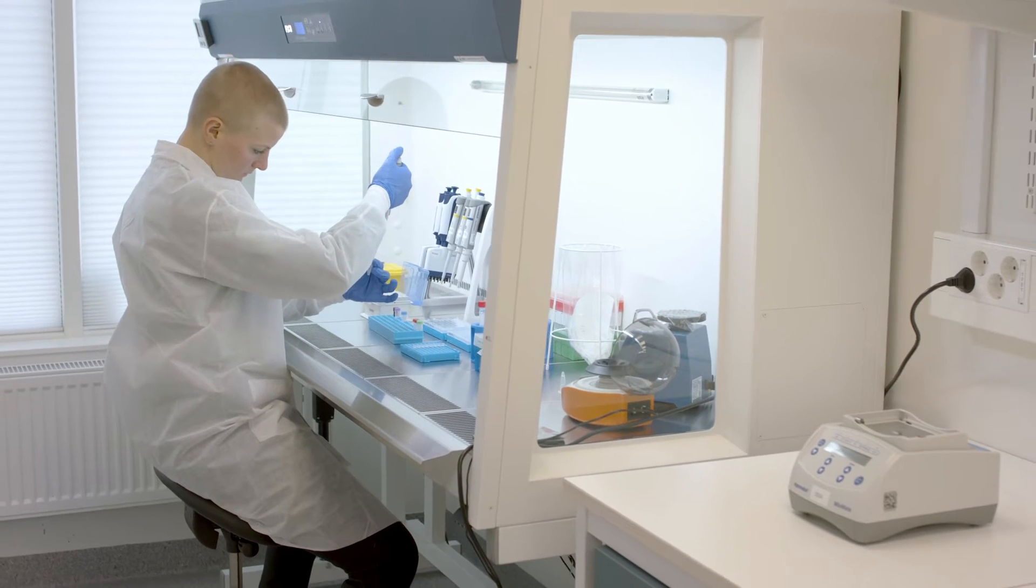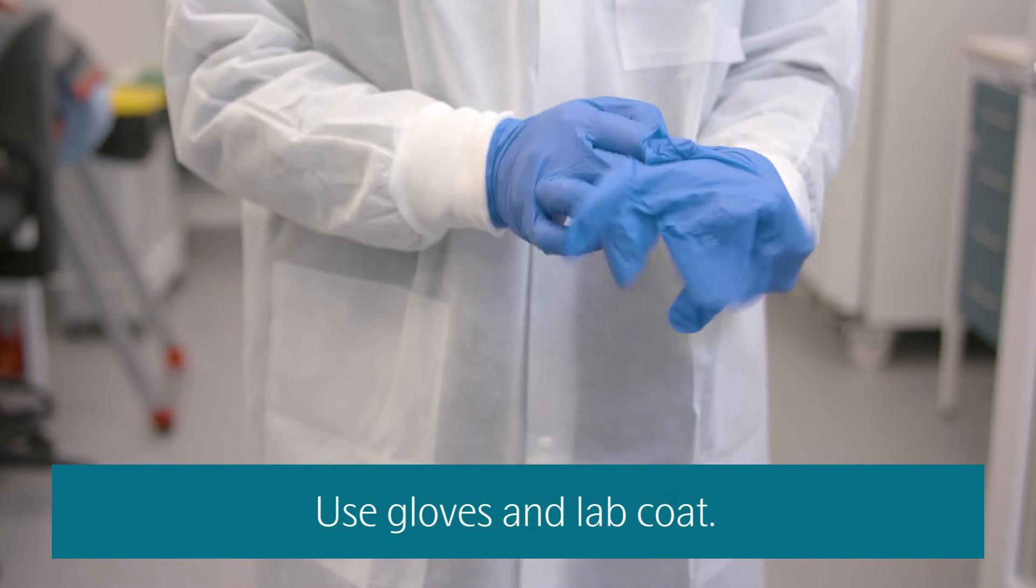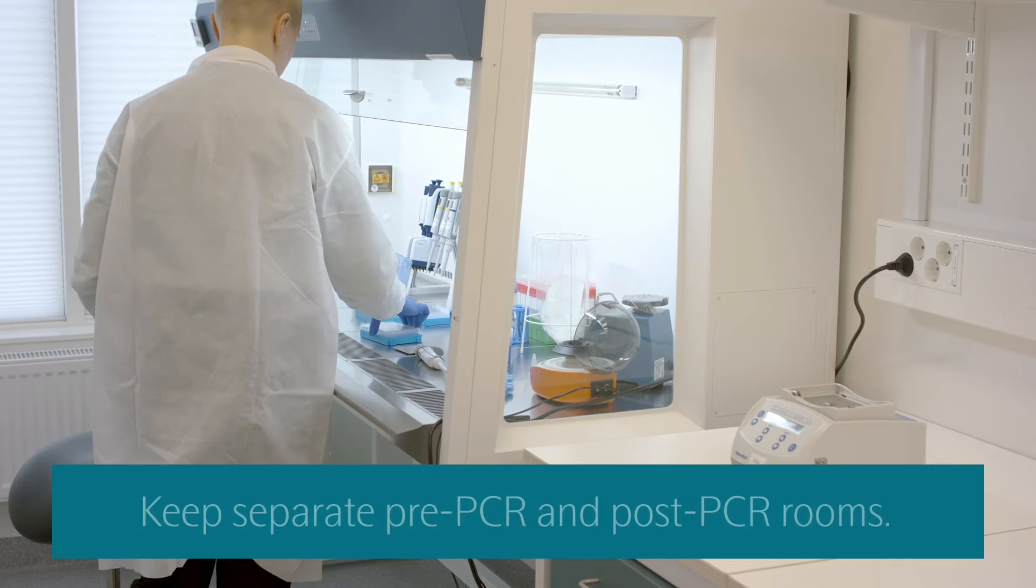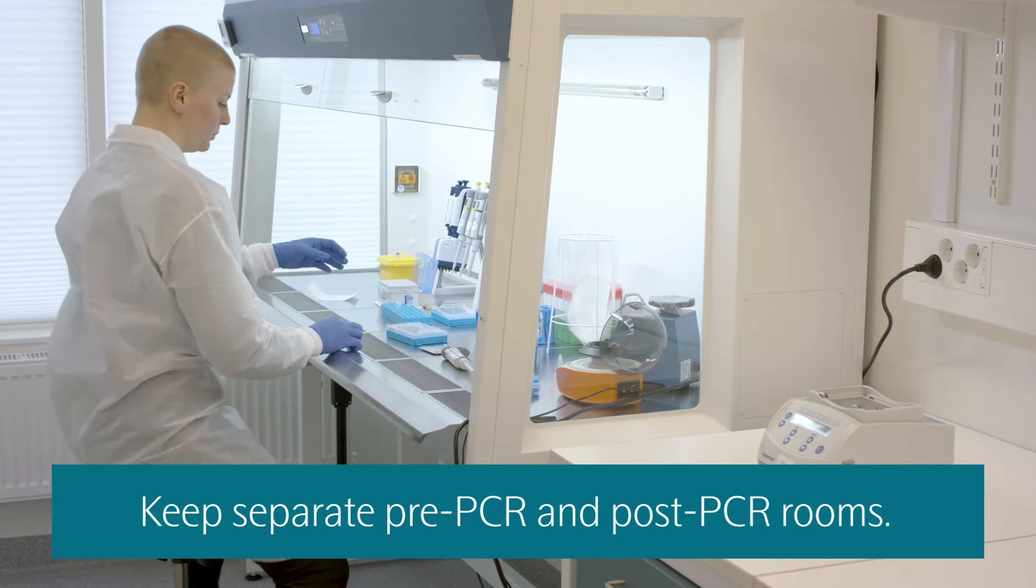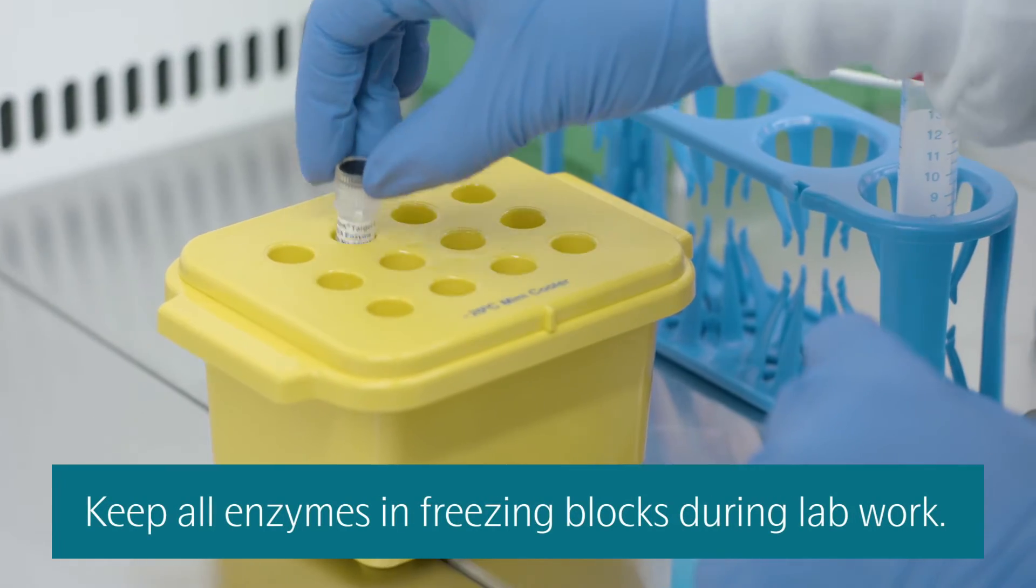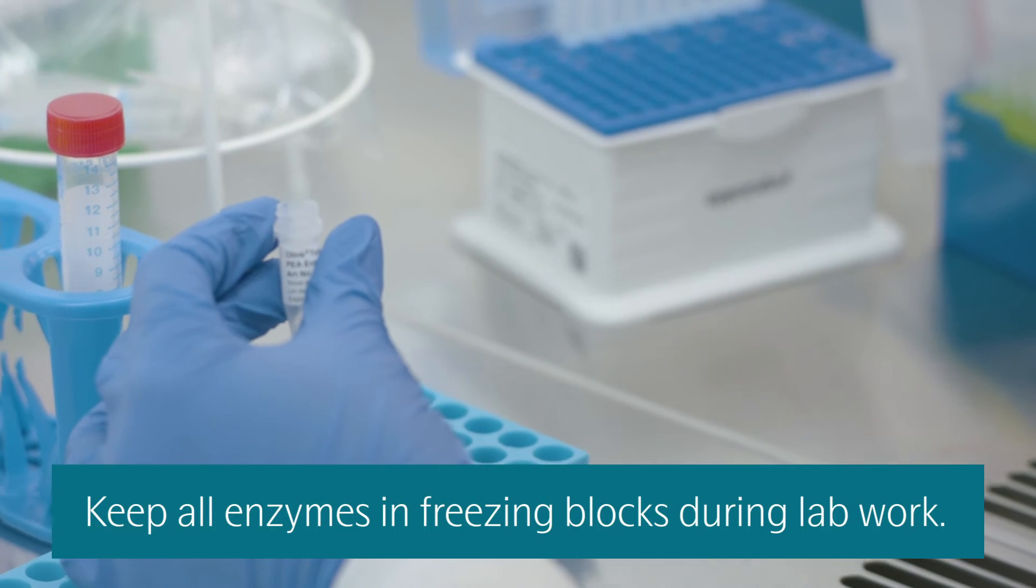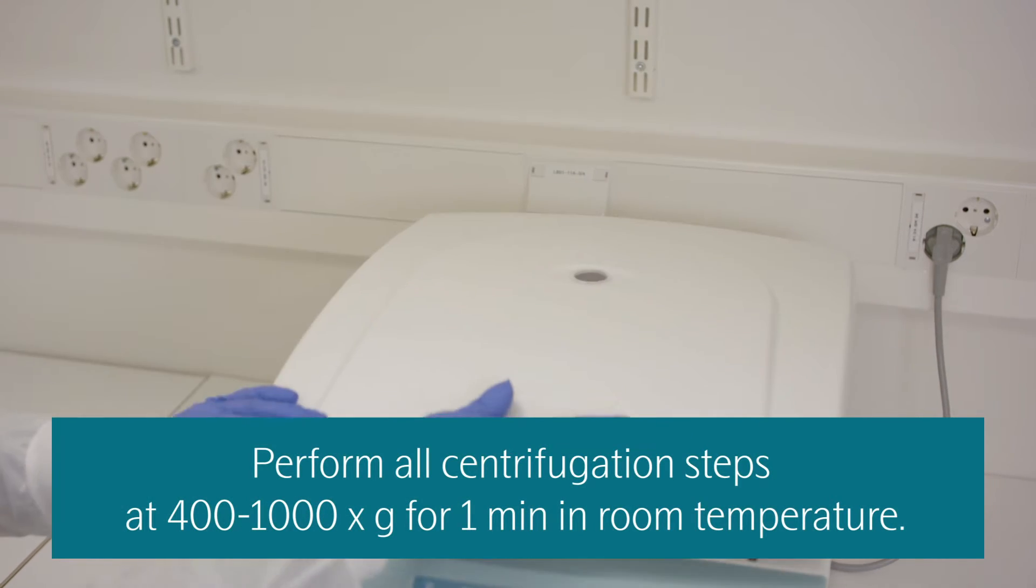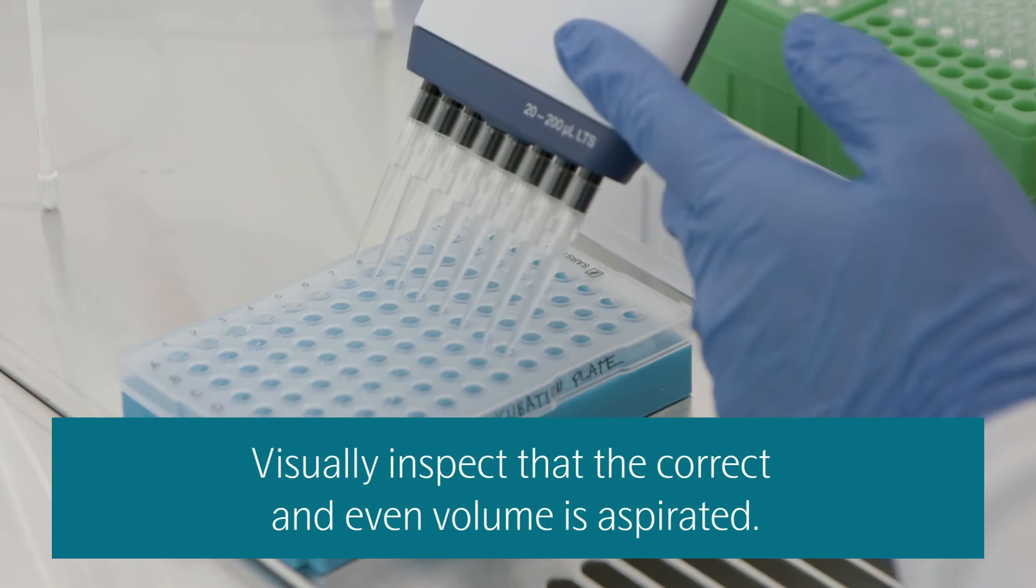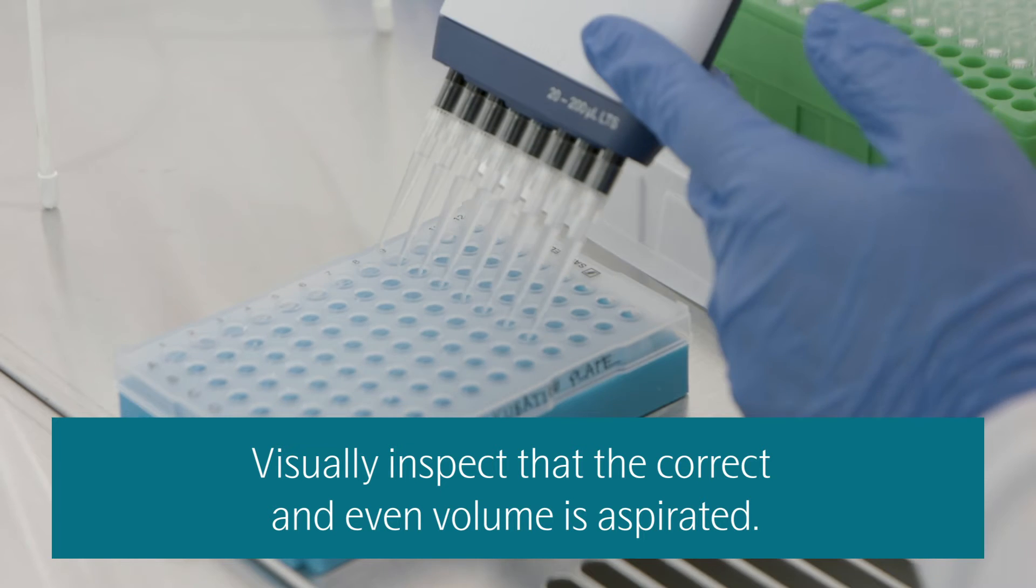There are a few considerations to keep in mind before running Olink kits. Always wear gloves and a lab coat to prevent contamination of assays and samples. Carry out pre- and post-PCR procedures in separate rooms if possible. Always pipette from the liquid surface. Keep all enzymes in freezing blocks during lab work and return them to the freezer after use. Perform all centrifugation steps at the suggested centrifugal speed and time specified, and always visually inspect that a correct and even volume is aspirated during each pipetting step.